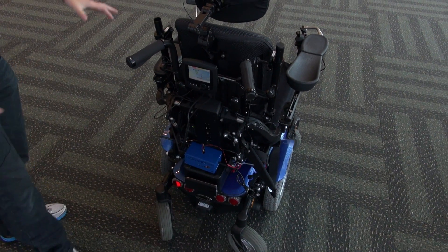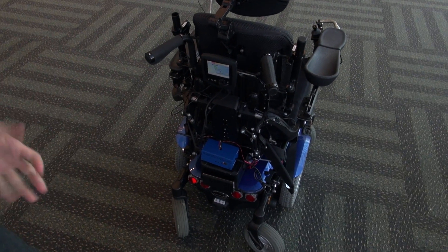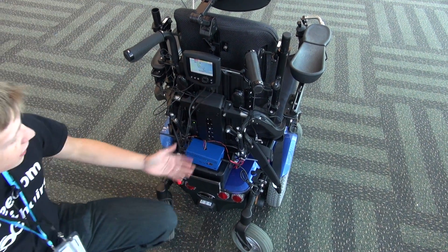The wheelchair itself is just a standard wheelchair on the market, but what we did is we created a platform. The platform can be added to any wheelchair and nearly anything else, and just collect data and stream it.